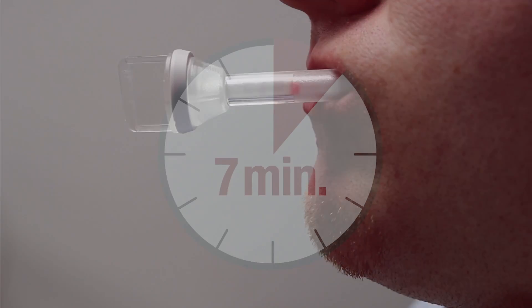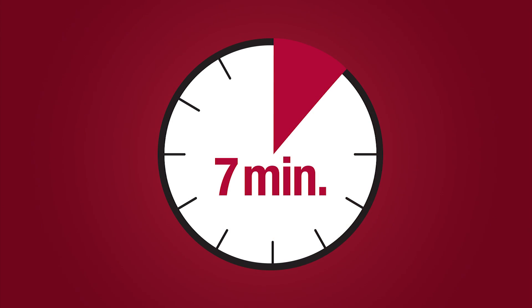If at 7 minutes, red color on the saturation indicator has not appeared in the indicator window, proceed with the test.